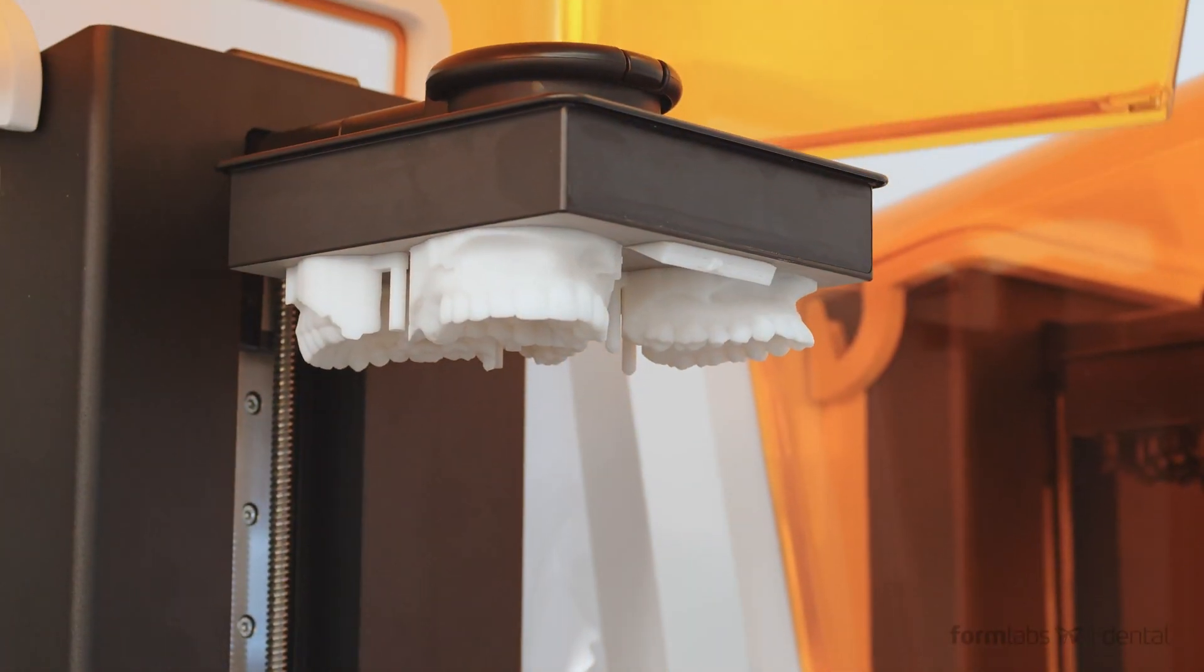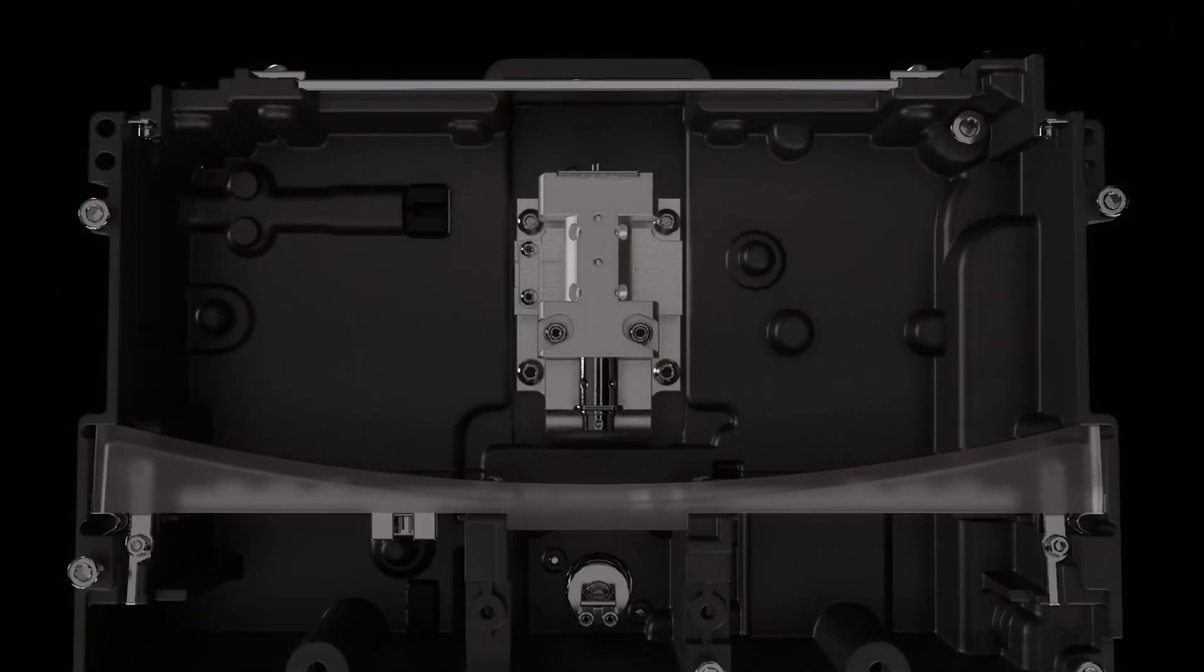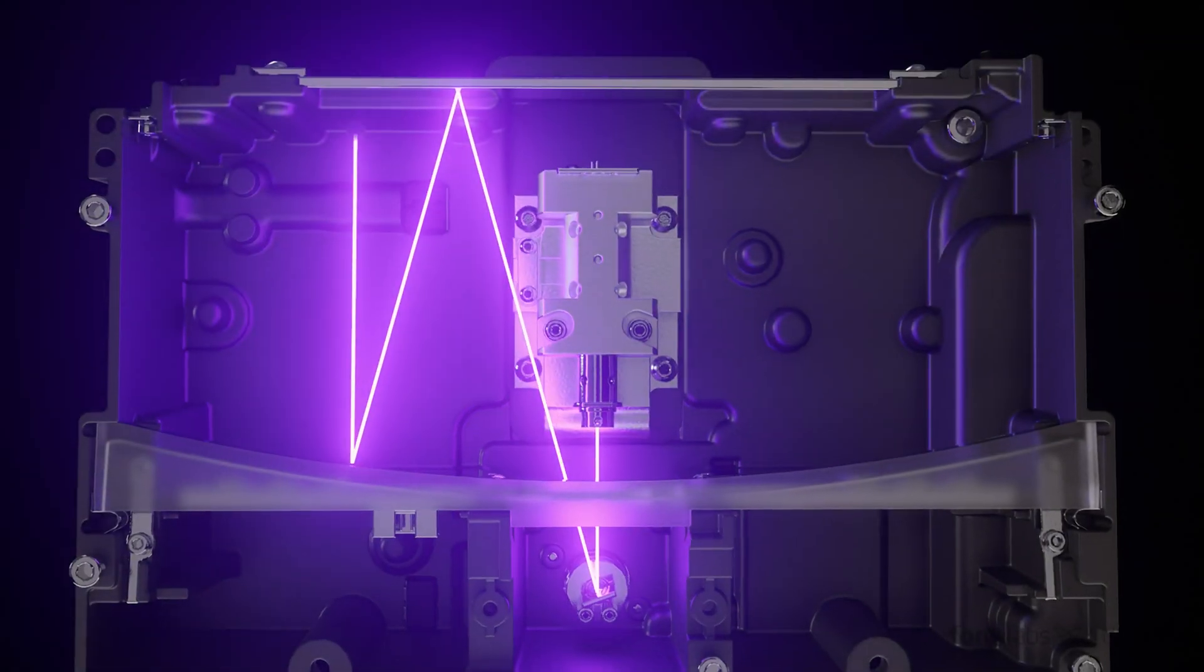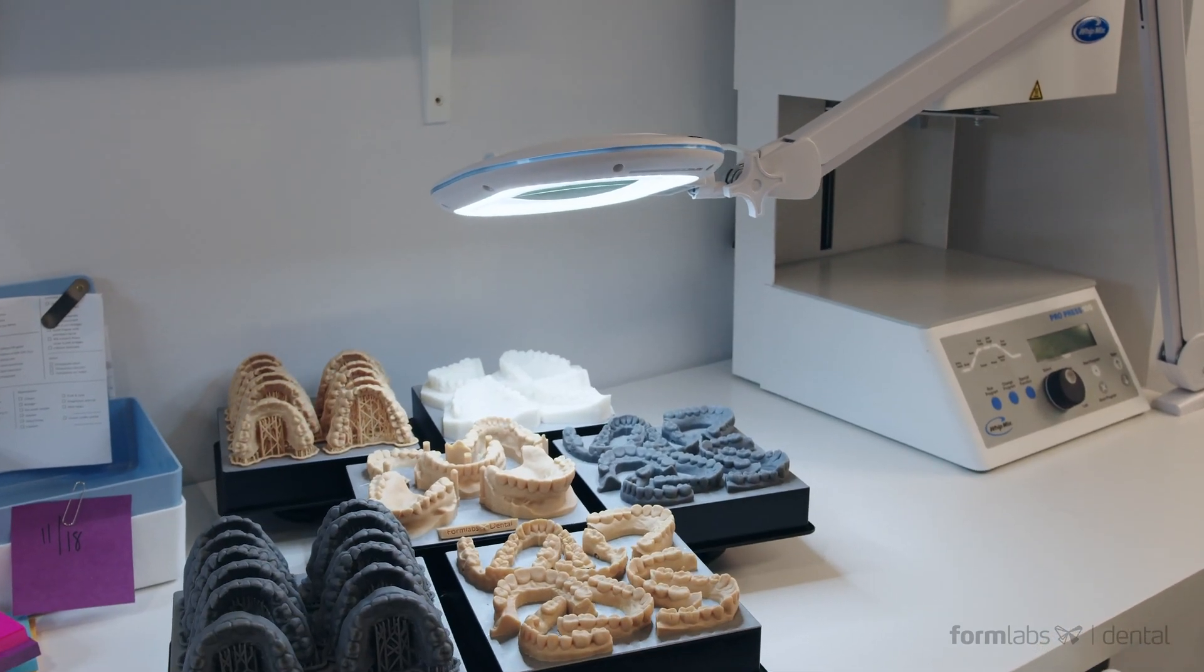The Form 3B produces parts with unmatched surface quality and clarity. We fine-tuned our state-of-the-art low-force stereo lithography technology for optimal performance with biocompatible and other dental-specific materials.